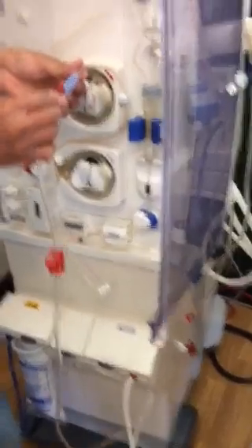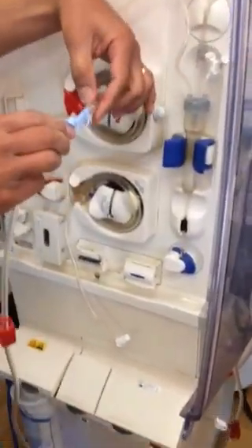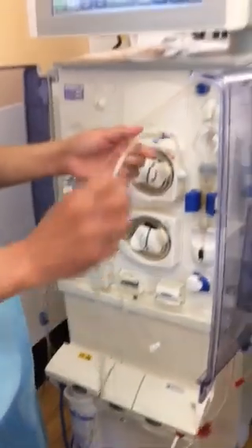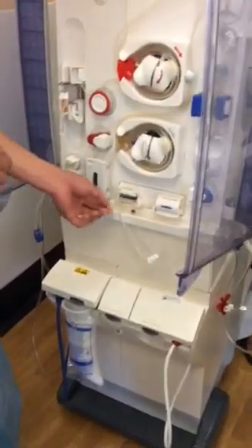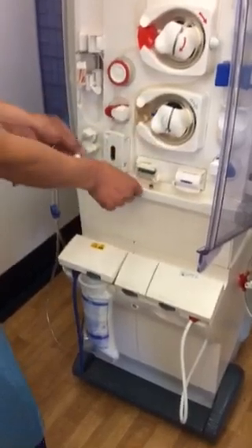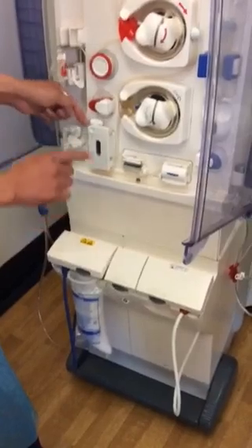Very important — when you put this one together, make sure it's tight. Usually you just twist it on both sides so it won't leak. And this one, just hang it like this. I just hang this one — this loop from here, here to here — so that you won't get lost as well. This one will go here on top, because if you just hang like that, sometimes you will get lost.